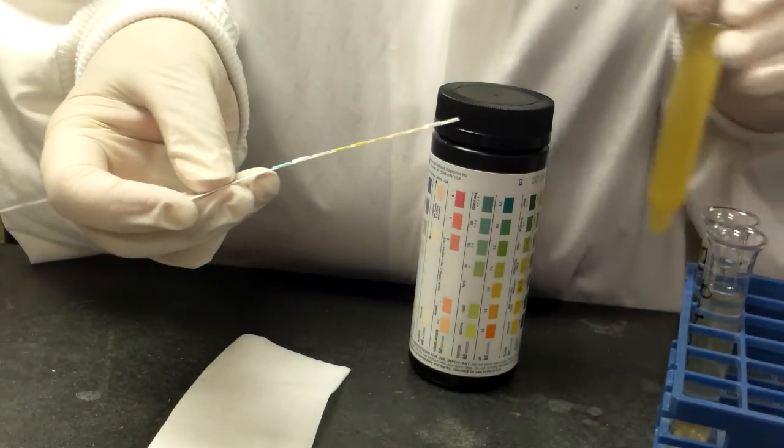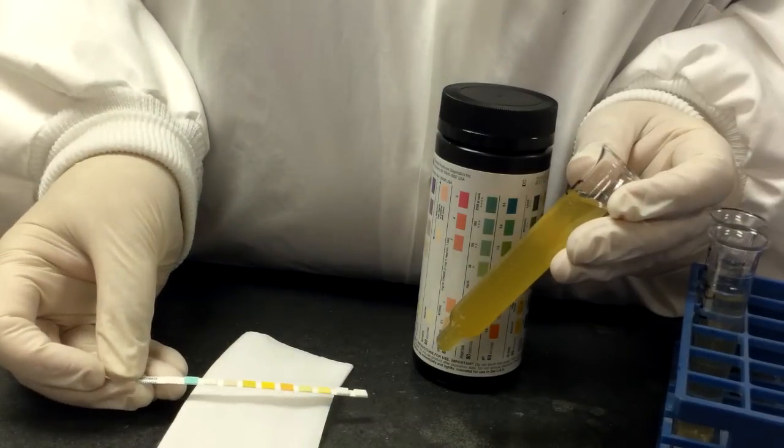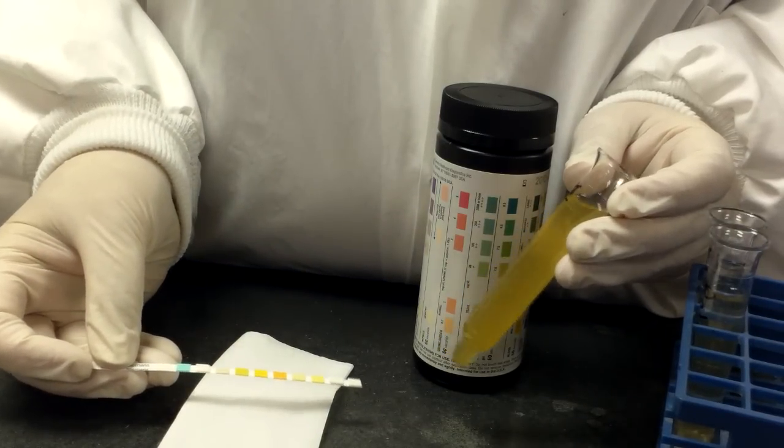So all you're going to do is you're going to take your specimen, which in this case we've put it into a centrifuge tube. You can also do it in just a regular 13 by 100 tube.